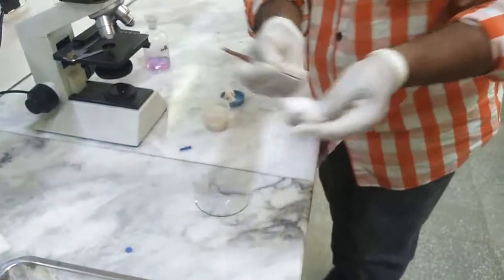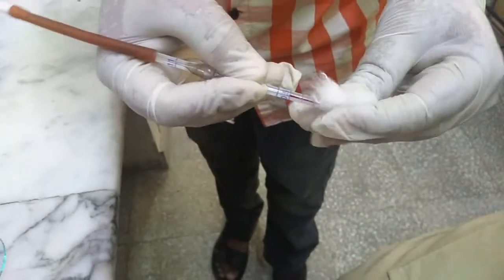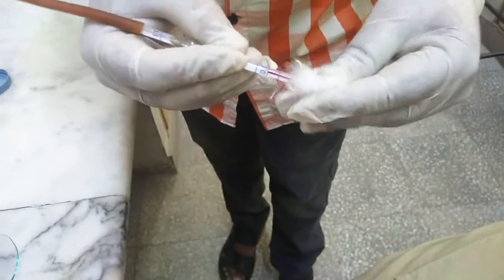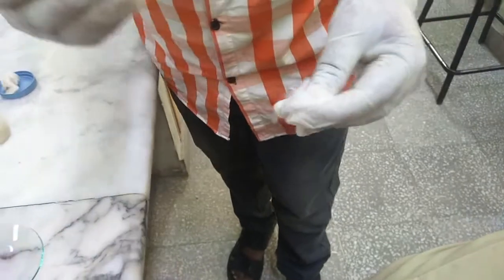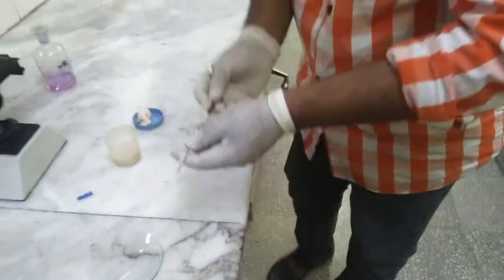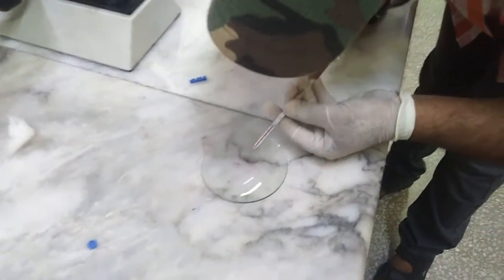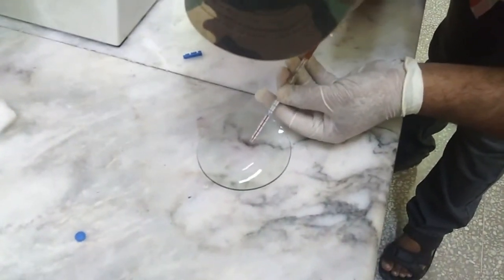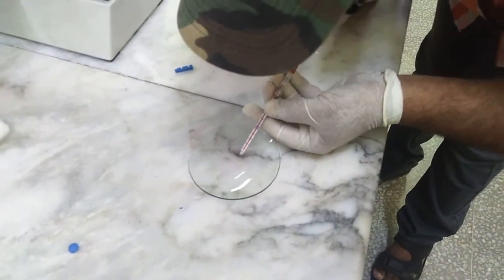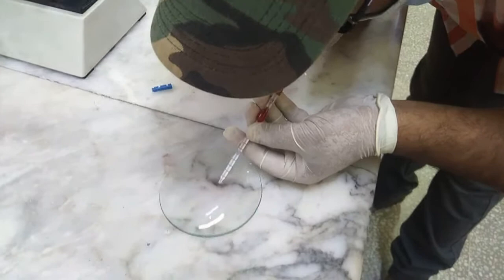After that, the tip of the WBC pipette will be cleaned with the help of a clean cotton swab. After this, we will take the Turk's fluid in the WBC pipette up to the mark 11.